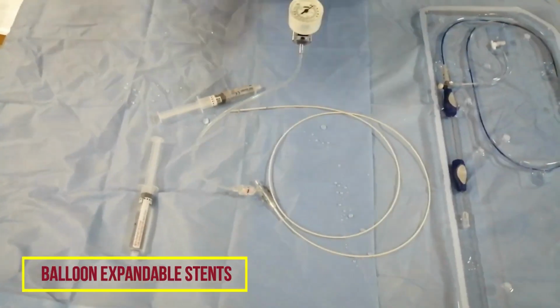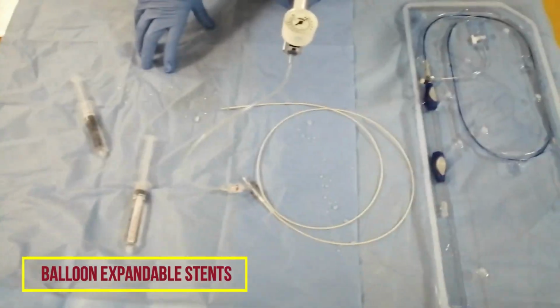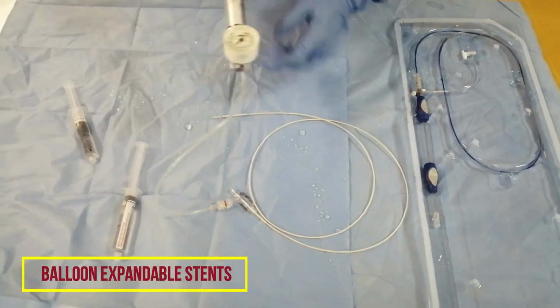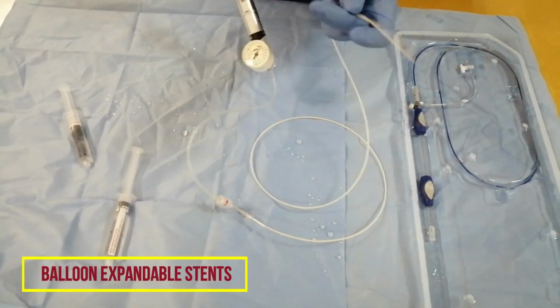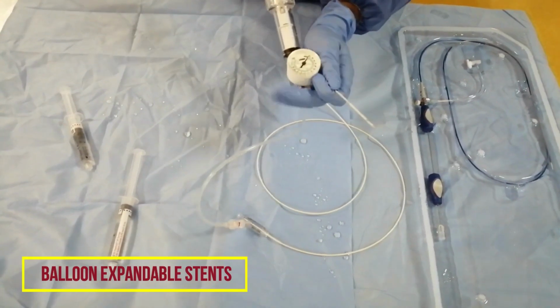We have to look at the catalog to see the nominal pressure and the bursting pressure for the deployment. This is usually the case for balloons, but for stents also we have to check the pressure recommended by the company. Now you can see the stent here in my hand, and also the inflation device.